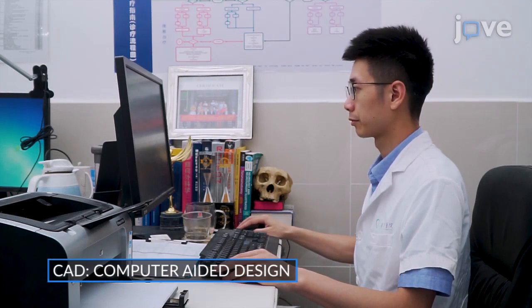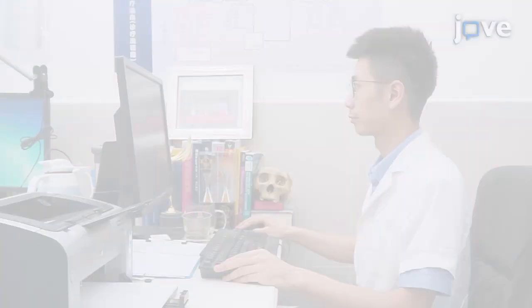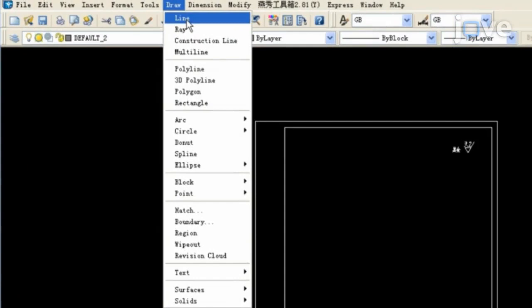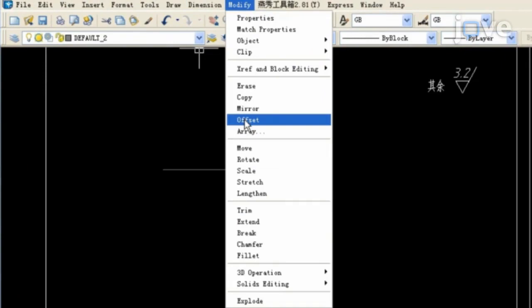To draw a 2D image of a burr hole ring, open a new graphical document in the 2D CAD software program. Click Draw and Line and draw a reference point with a solid line on the drawing. Then click Modify and Offset and type the specific offset distance in the command line.